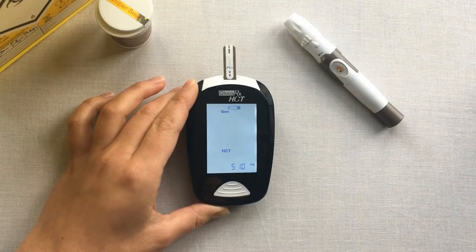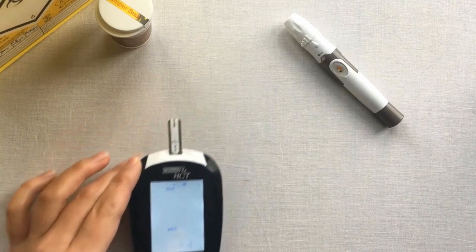The meter will automatically identify if you are performing a QC test. Please then put your meter down.